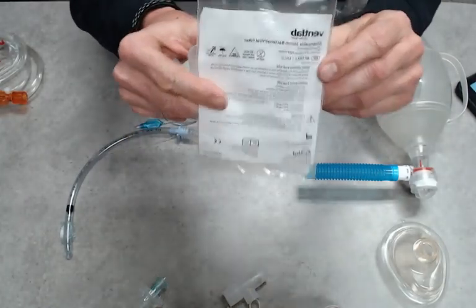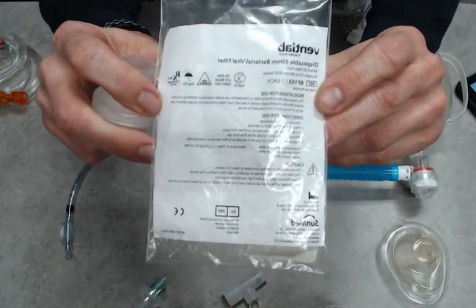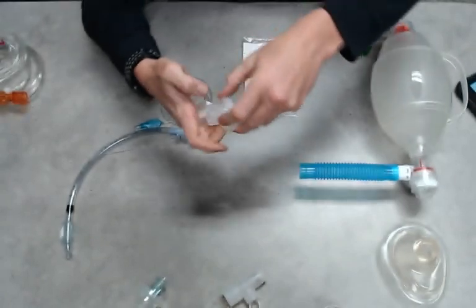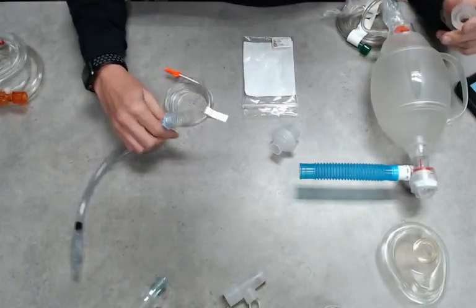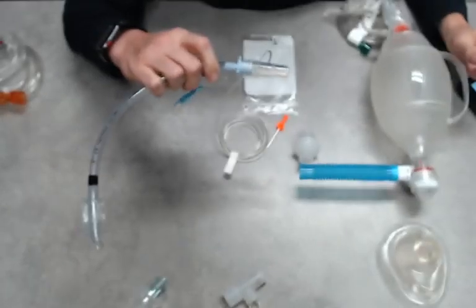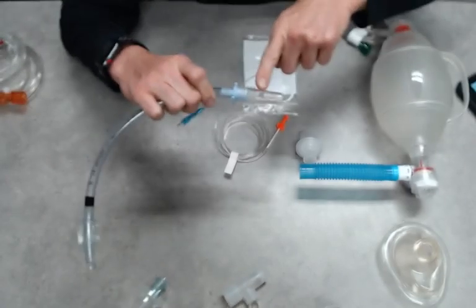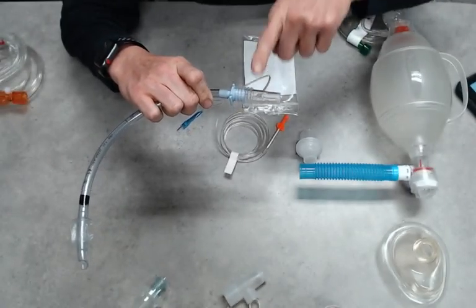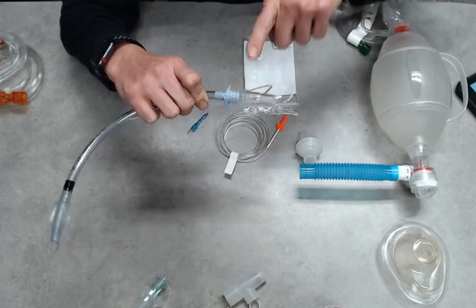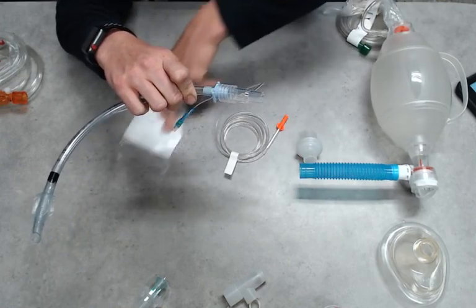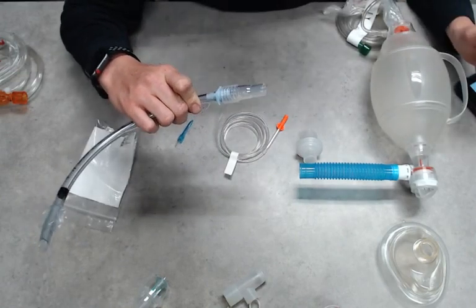You can see here is the packaging that it comes in. Now one thing I noticed as we're trying to connect, keep in mind any time that we have an airway we should always be monitoring end-tidal CO2. This is the gold standard, especially with your advanced airways, confirmation of tube placement and to monitor how we're adequately ventilating.